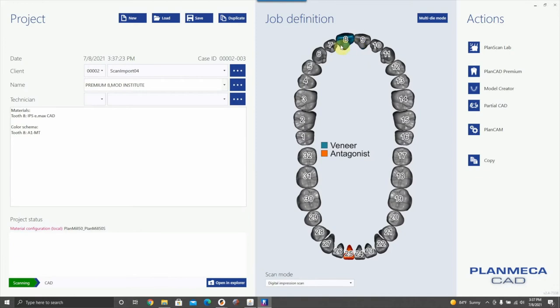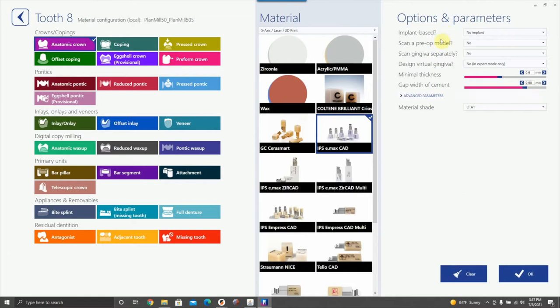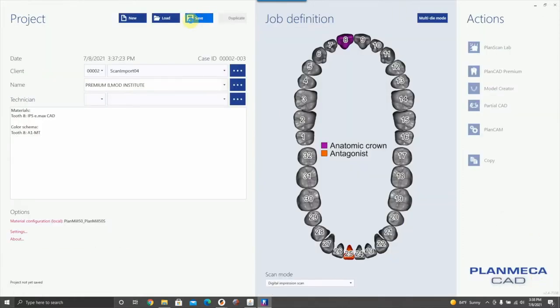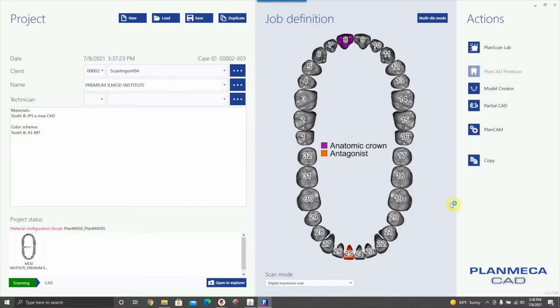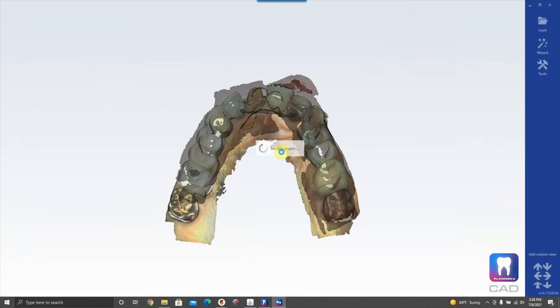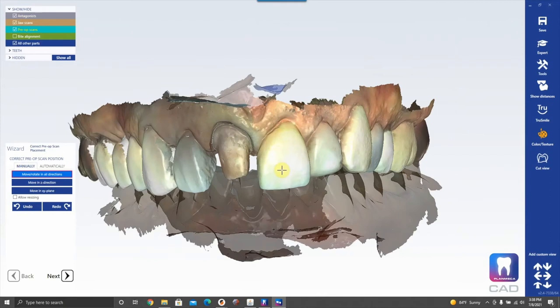So this is actually a crown. Click tooth number eight and call it anatomic crown. We did scan a pre-op model, so select scan pre-op model: yes. We did not scan gingiva separately and do not want to design a gingiva — all these are defaults for Emerald S. Hit Save and open PlanCAD Premium. Because we selected pre-op, it will immediately ask you: is the pre-op model aligned appropriately to your prep model?